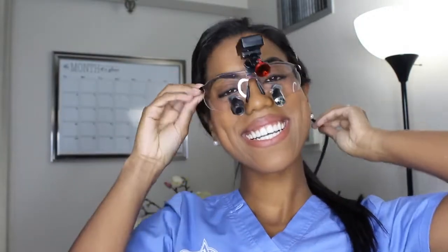Once you've found the perfect frame — sits on your nose well, cheekbones are not in the way, you feel comfy, they're not heavy — the next thing is to choose a magnification. Schools will probably tell you to start at 2.5, and the reason is they just want you to be able to work up to higher magnification in case you ever want to become an endodontist and go to your 4.0s. But the reality is, when I tried on a 2.5, I really did not see much of a difference. Most of my classmates who were on the fence went with the 3.0 magnification.